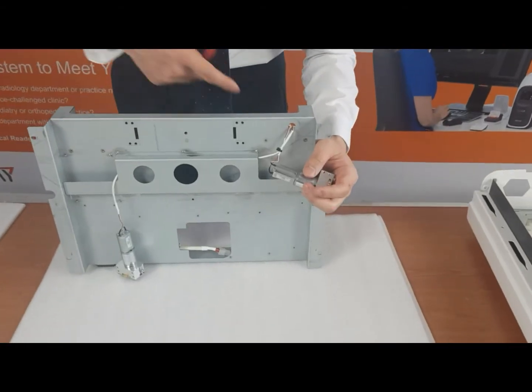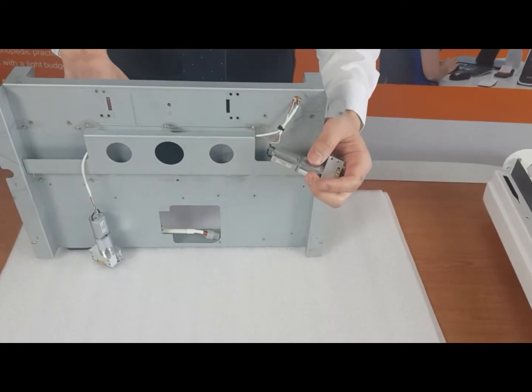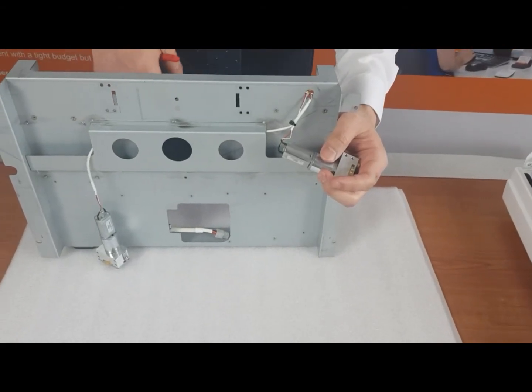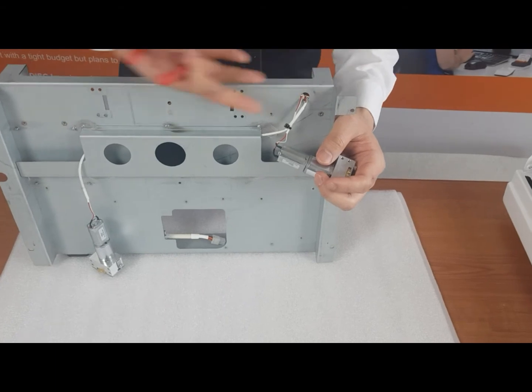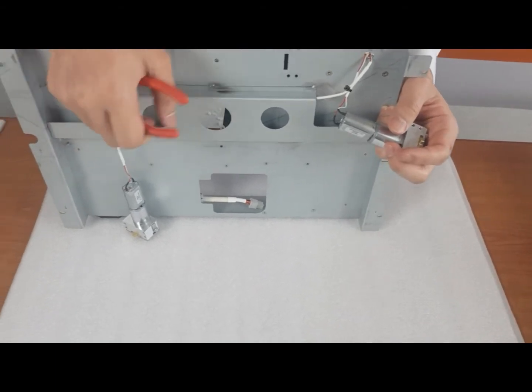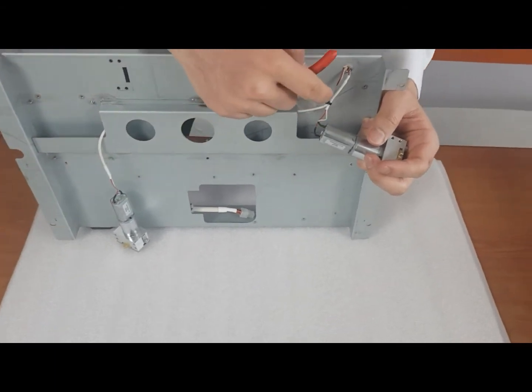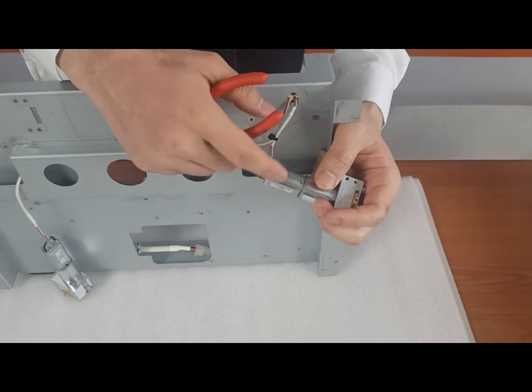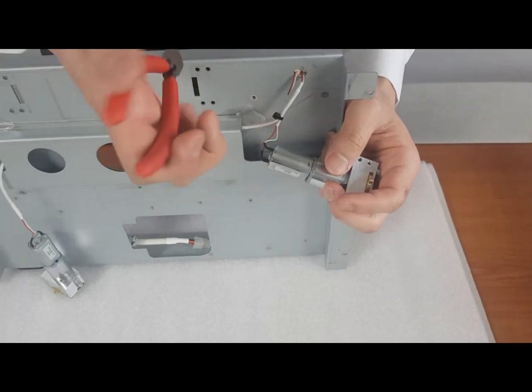So now that I've removed the two screws, you have to just take the align motors out from the block. But to do that, you have to first remove the cable tie.